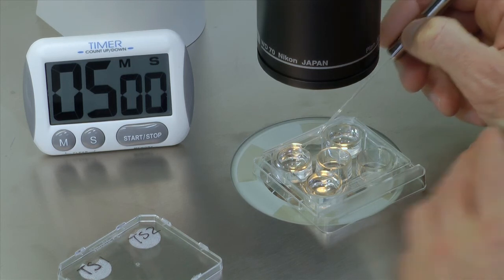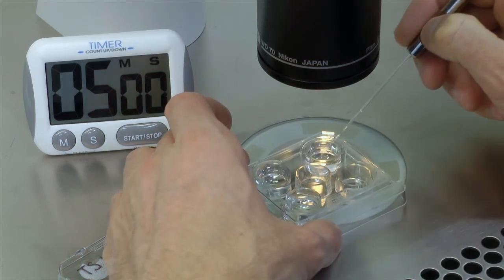Remove the embryos into thawing solution 2 and expose for 5 minutes at ambient temperature.